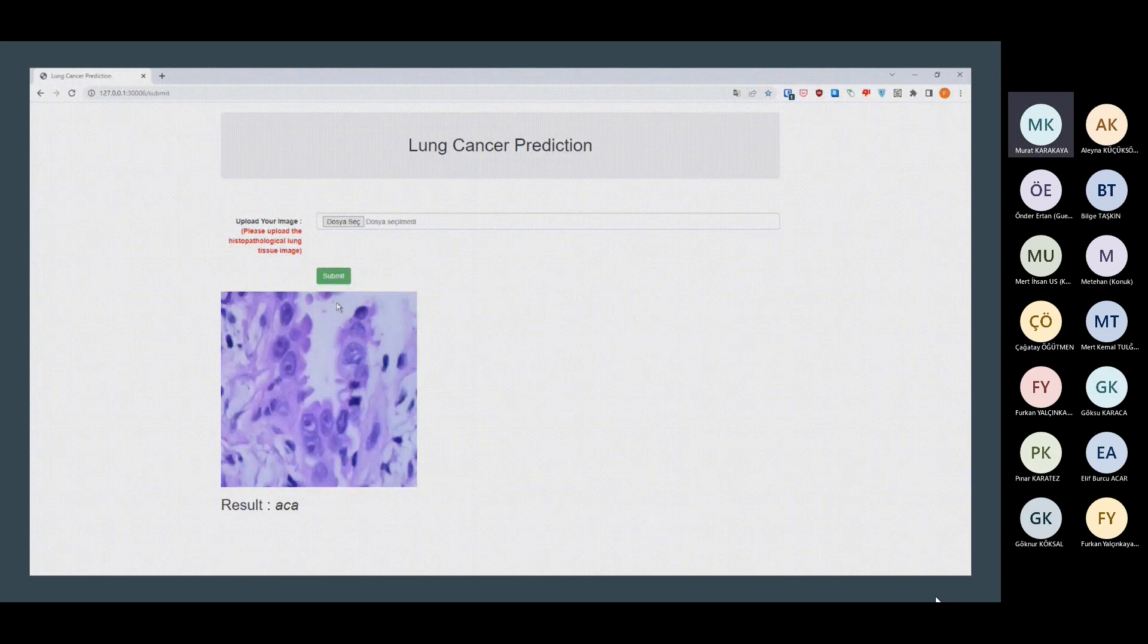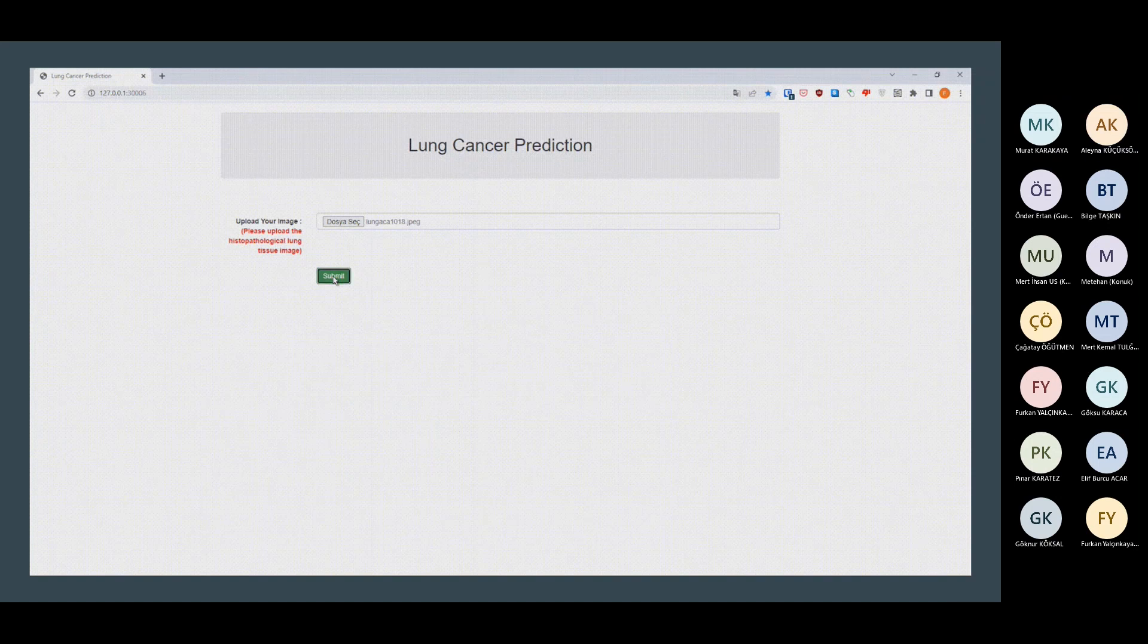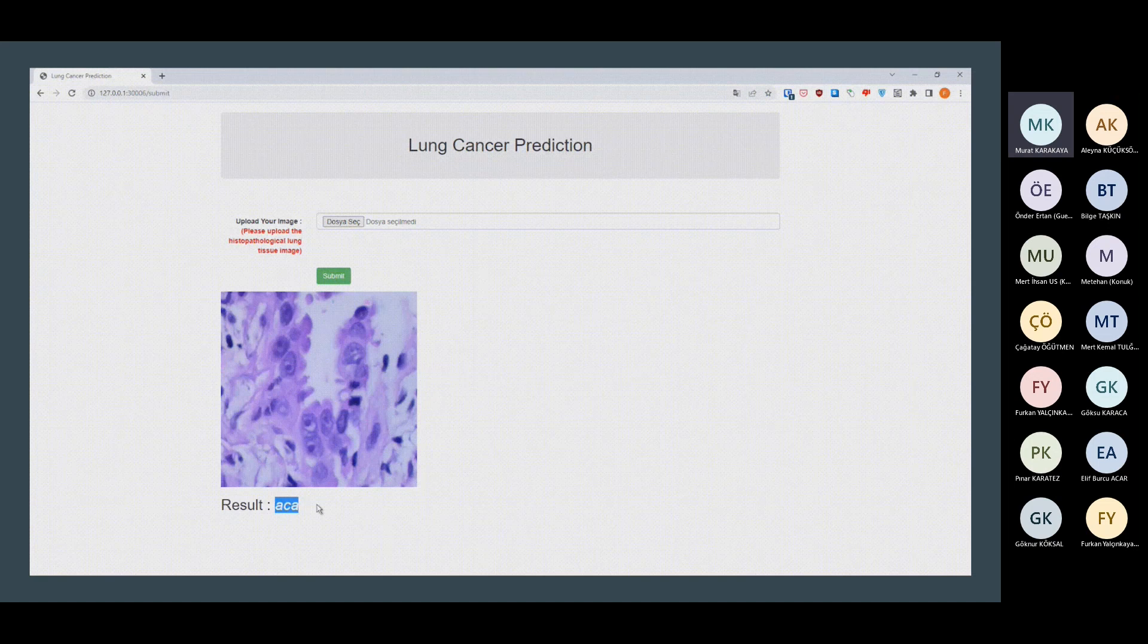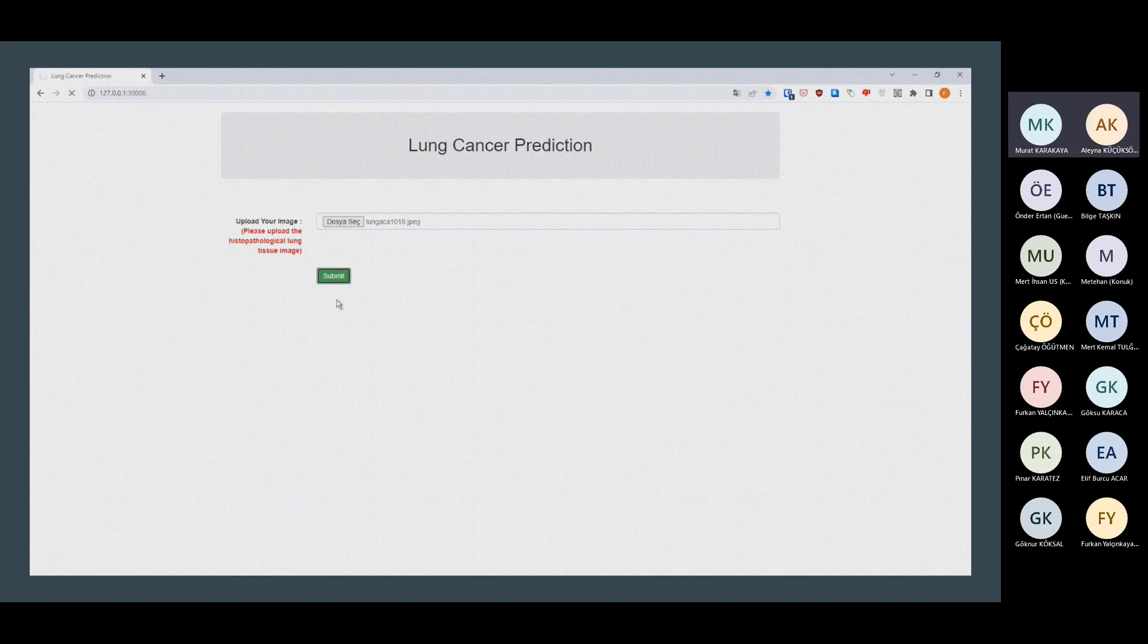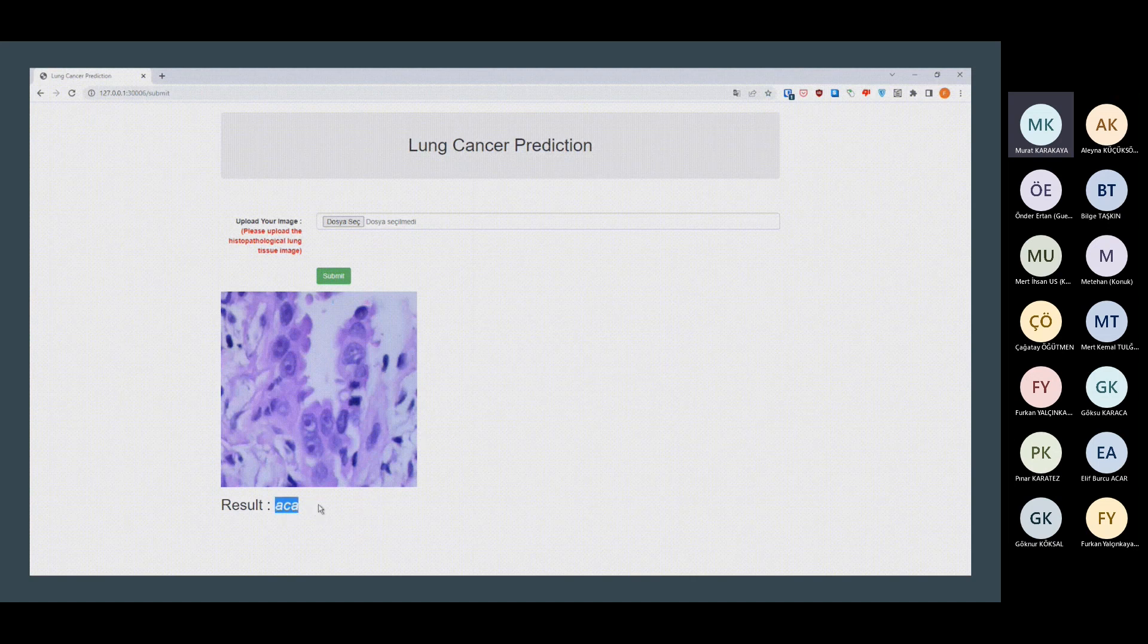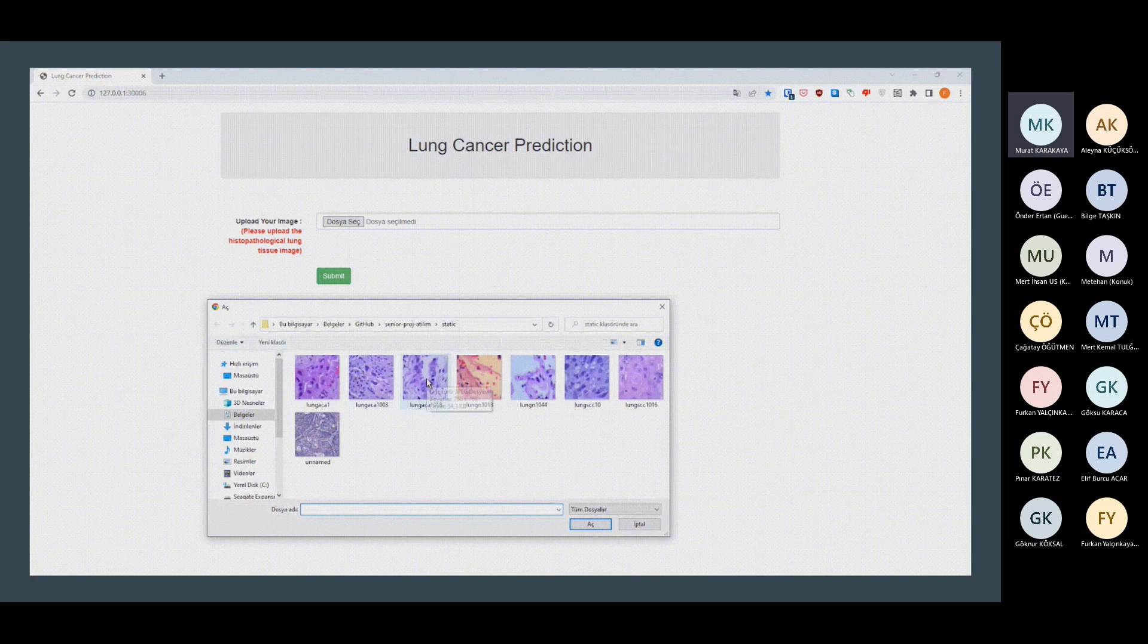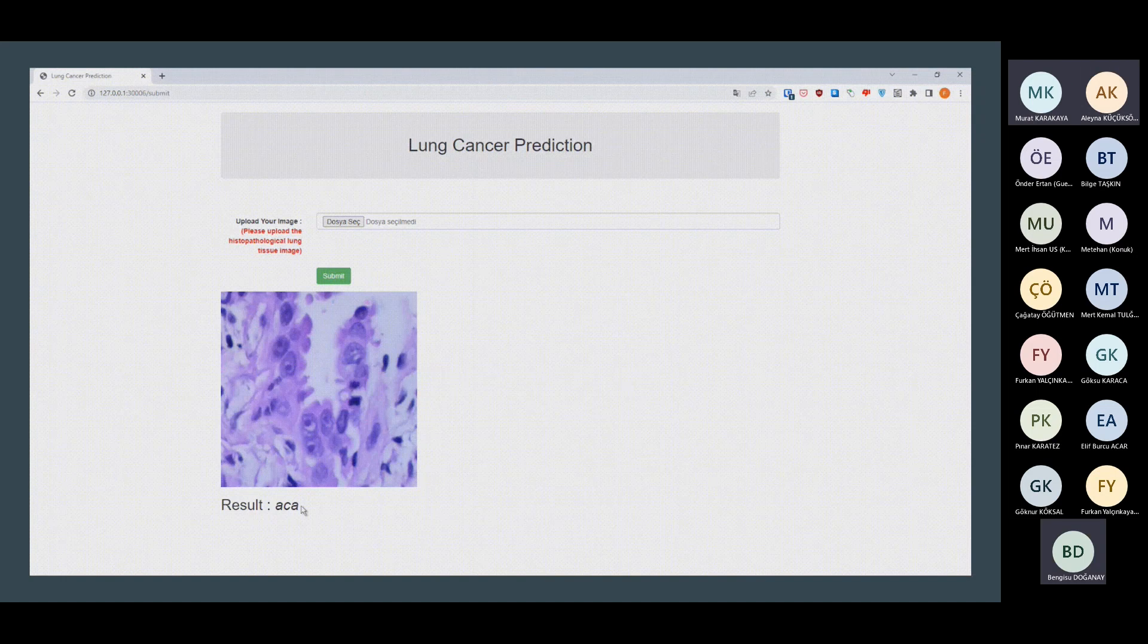The second thing is that you upload one image at a time, right? But in most cases at a hospital, you might need to upload in a batch. So you might have an interface to select more than one image. Do you agree? Yes. So you can upload, for example, 10 images, and the report could be giving the image name and the result to the user. So in a hospital scenario, there could be more than one image uploaded and then compare each result as a list. Think about this.